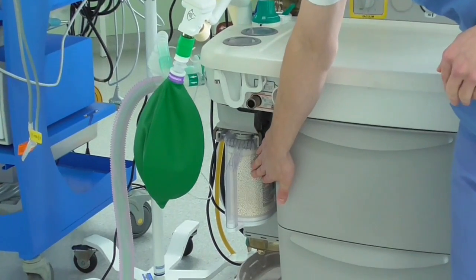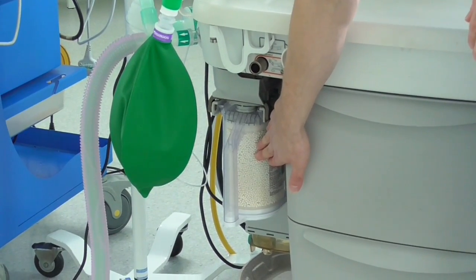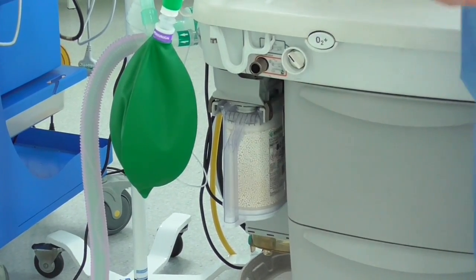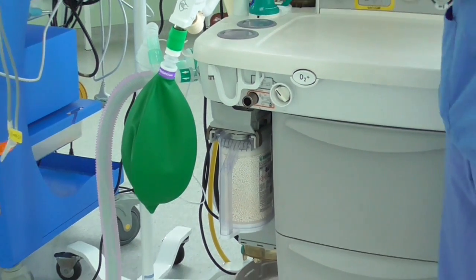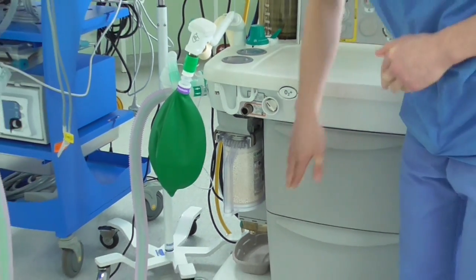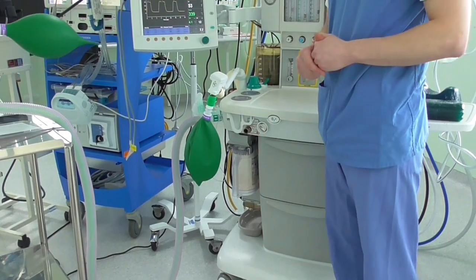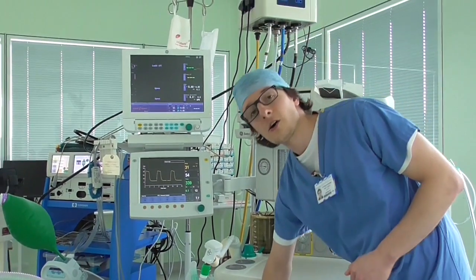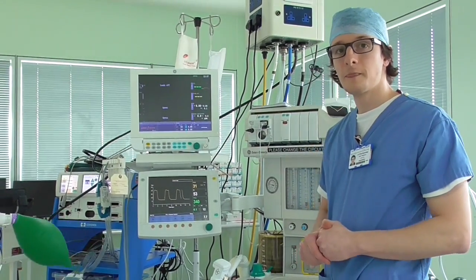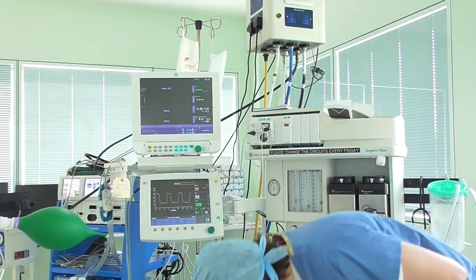It's very clever in that it colour changes — it's used up quite quickly and changes to pink when it's exhausted. The small container behind it is a water trap. When carbon dioxide is absorbed it produces water, creating extra humidity in the circuit, which is removed by the water trap.